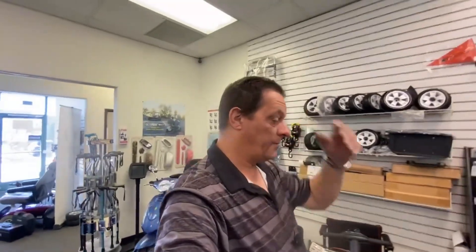We go through these questions on the phone with most of our customers who have a problem. The ones that have errors that aren't explained then it's a case of having to bring it into the store so we can diagnose it for you. We diagnose for free up to the point of having to take things off the power chair or scooter. Nine times out of ten I can pretty much diagnose what the problem is just by looking at it and doing some very basic checks. We do a basic diagnosis for free — something a lot of other retailers don't do.